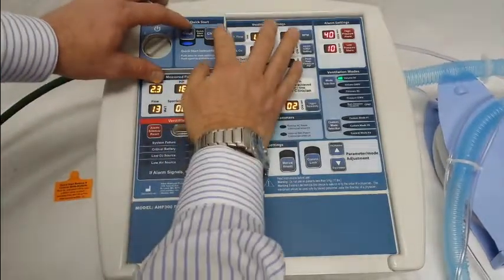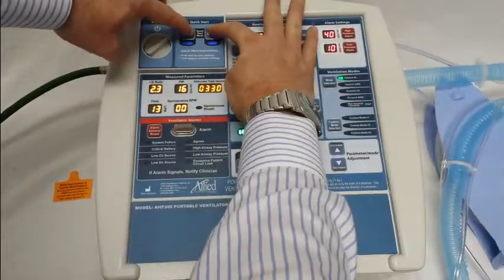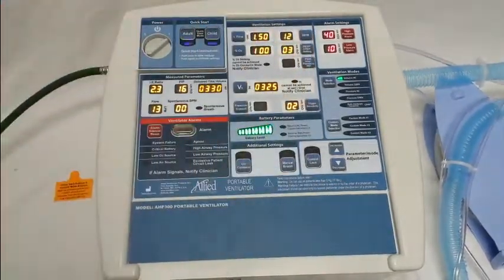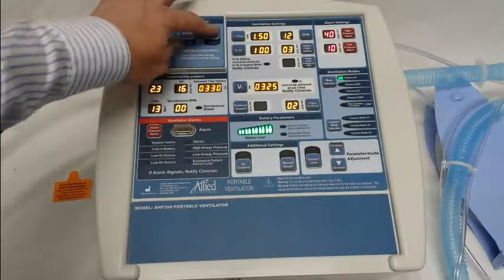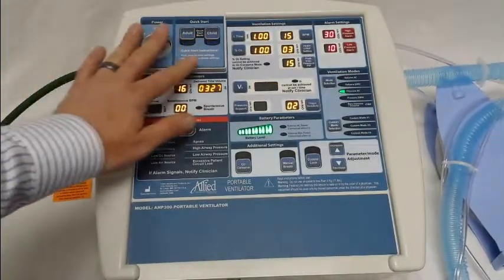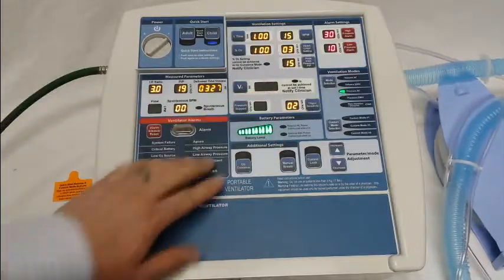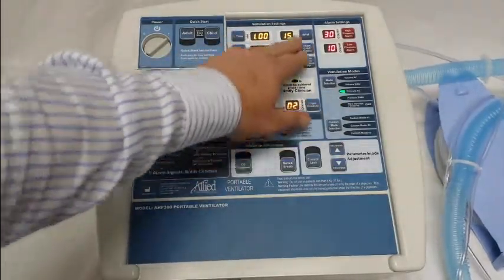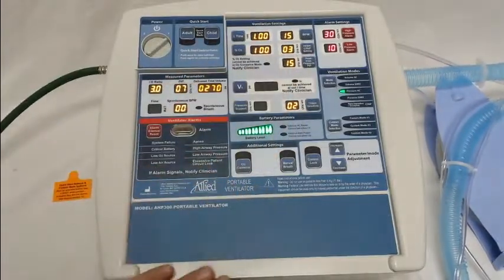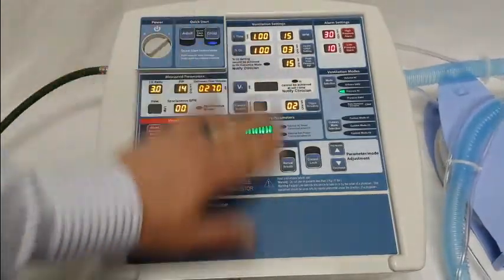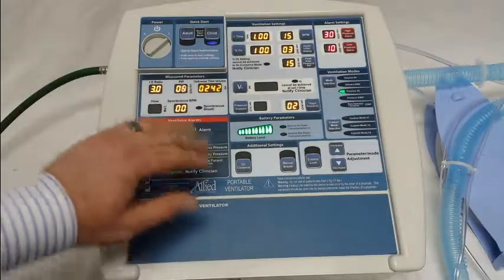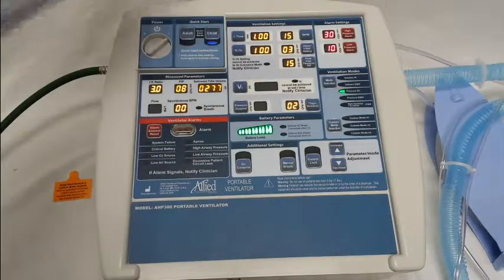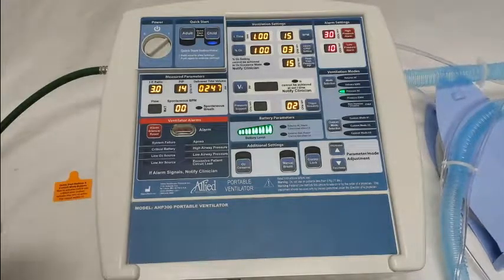Now let's go through it again for the child. Again, hold both buttons to start, wait for that beep, then let go, and this time we'll program the child. We're in pressure assist control mode with our I-time and breaths per minute set. I'm going to go ahead and save this as-is and confirm these settings. Whenever you're ready, you just hold that button down for two to three seconds. When you hear a beep, it's saved.